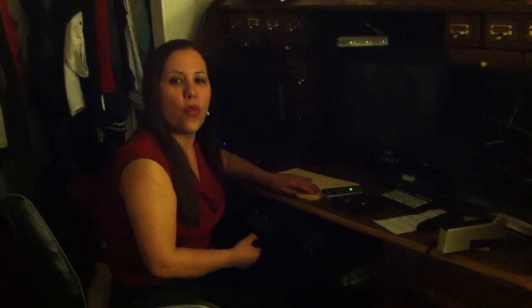One of the first things that I want to show is a computer that has a screen reader called JAWS. This is a software that is installed into the computer, so anything we do in the computer, it will be talking. This is my computer, and I typically don't turn on my monitor because I listen to it, and this is how it sounds.